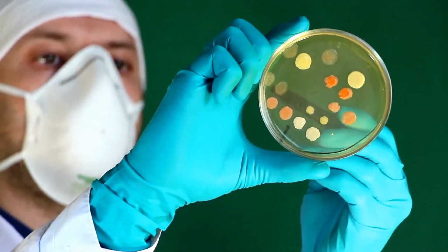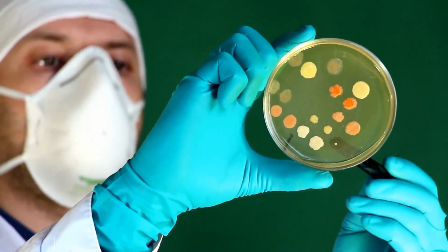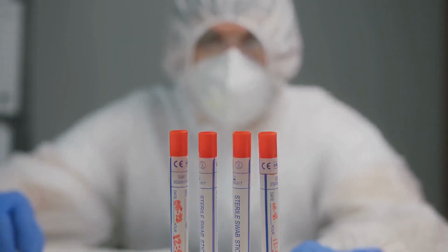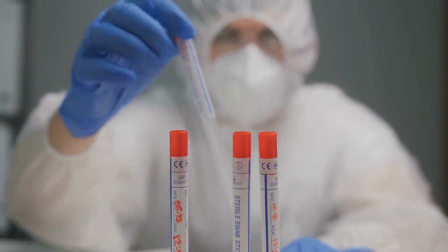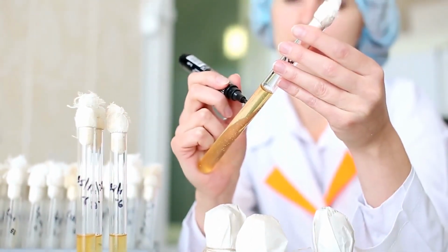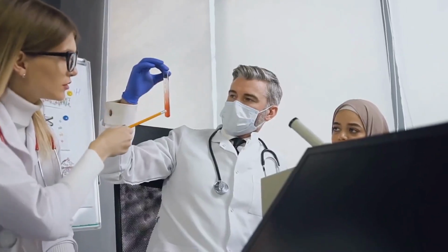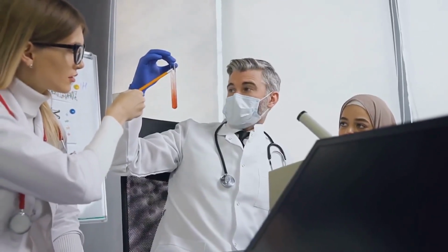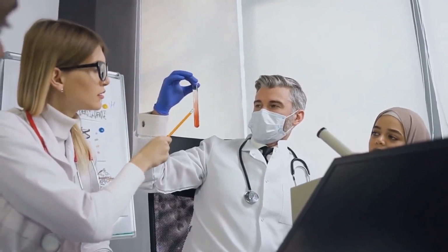In this video, you explored the clinical significance of biochemical tests and specialized media in microbial identification. We discussed how tests like catalase, coagulase, TSI, urease, and various agar types help distinguish pathogenic microbes from harmless ones, and how these results are used in patient care. Knowing how to interpret biochemical tests is a stepping stone toward diagnosing disease and recommending the right treatment in real-world healthcare.